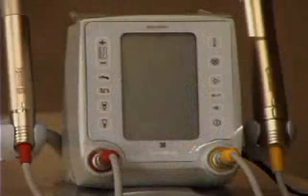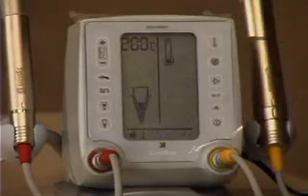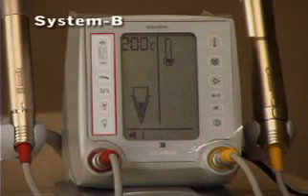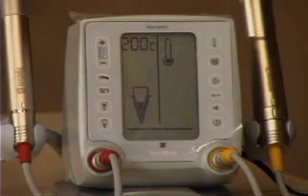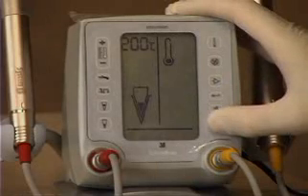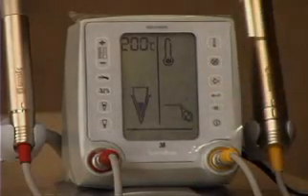We're now ready to activate the unit. The button in the lower right boots up the control system. You can see on the left the System B icons and on the right the extruder icons. The first time you hook up the extruder handpiece, you need to push the power button and then the extruder piston return button to calibrate the handpiece. This does not need to be done after the initial time.